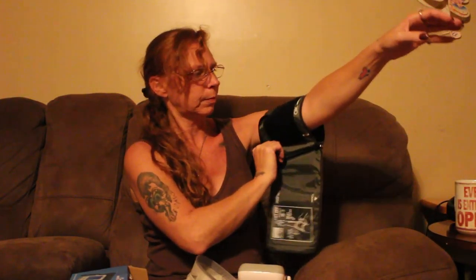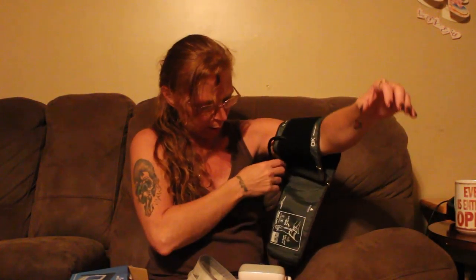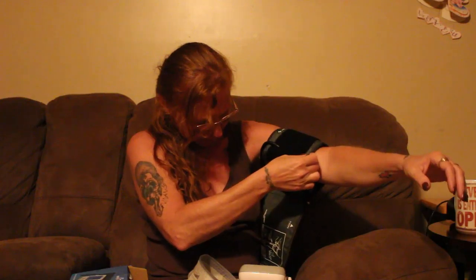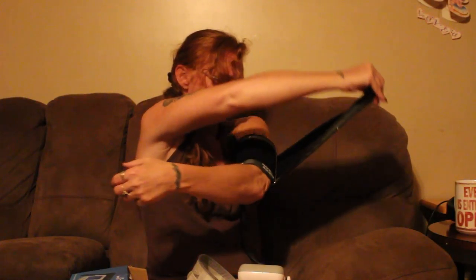It's very easy to put on, so if you were doing this on your own. It shows you where you need to have it positioned, and you have some instructions right there. You just take it and tighten it up.